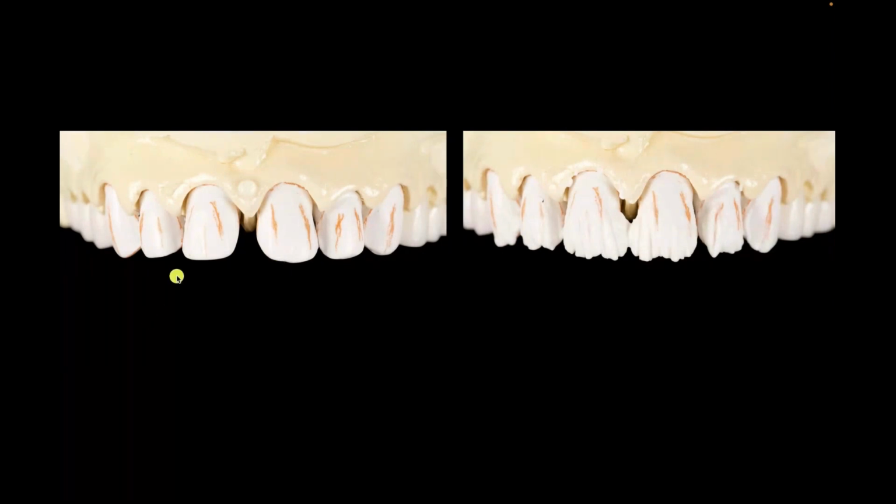And you can see really why I wanted refractory veneers here. Look at the amount of space I have to fill, not only interproximal, but incisal. And this is why a monolithic material wouldn't have done that well for me, because I'm only going to have 0.6 at the most here on the facial, but I need a millimeter and a half here to fill. How do I manage that? Which is the right ingot that can give me the opacity that I need and yet can give me the translucency I need at a different thickness? So this is why I opted for feldspathic, even though I went monolithic from bicuspid back.